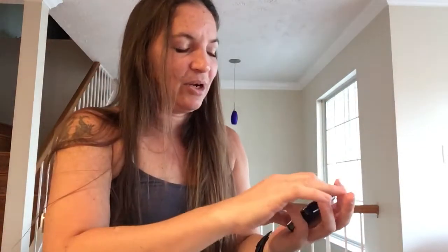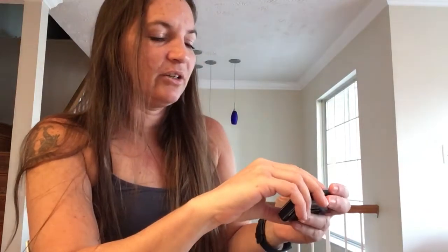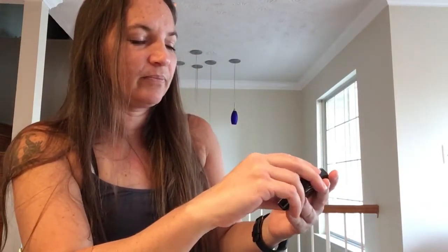I have my pump alarms set to vibrate, my pump alerts set to vibrate, and my reminders set to vibrate, which basically means I don't hear them. I do that because I suffer from alarm fatigue. It does mean I probably miss something from time to time that would be very helpful to hear. It's a personal preference — it's up to you what you need to hear and what you don't. The menu is definitely worth exploring.